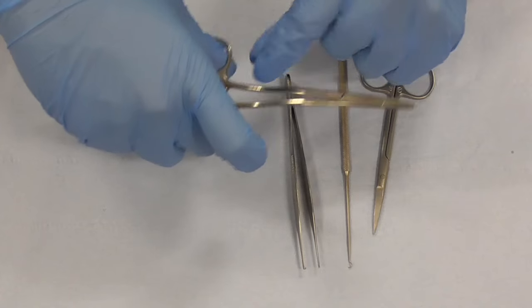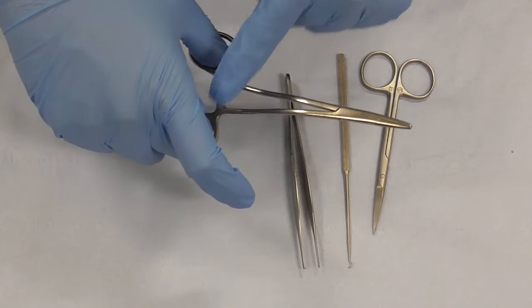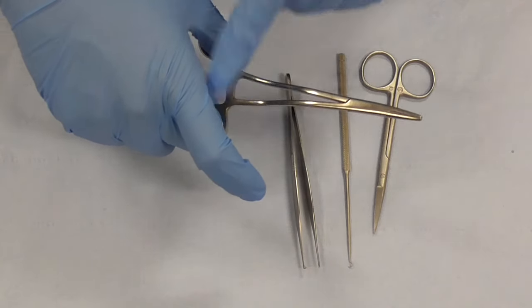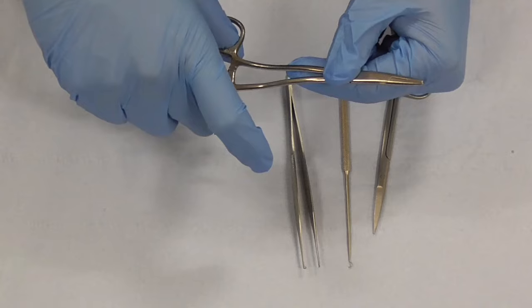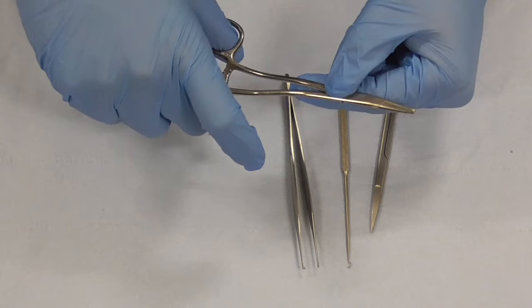You can hear that and you need to open it. Now I'm intentionally using my middle finger and thumb to demonstrate because that is the wrong way to hold it but it's the most common way I've seen people who are first starting to suture use it.